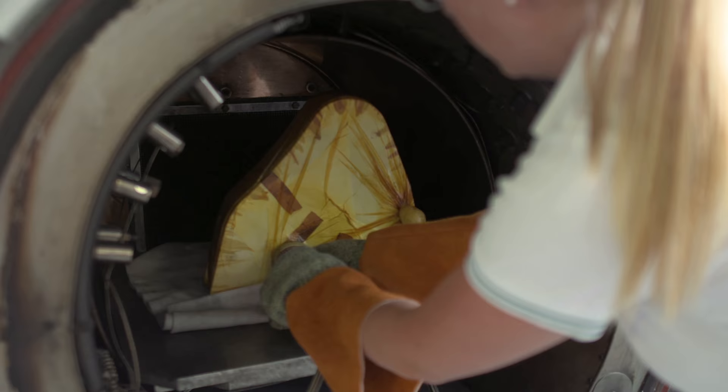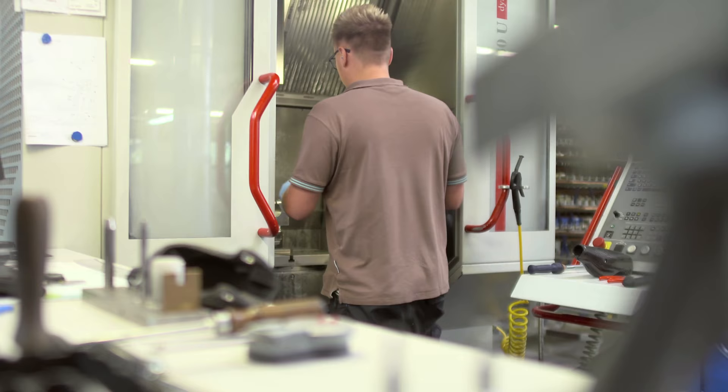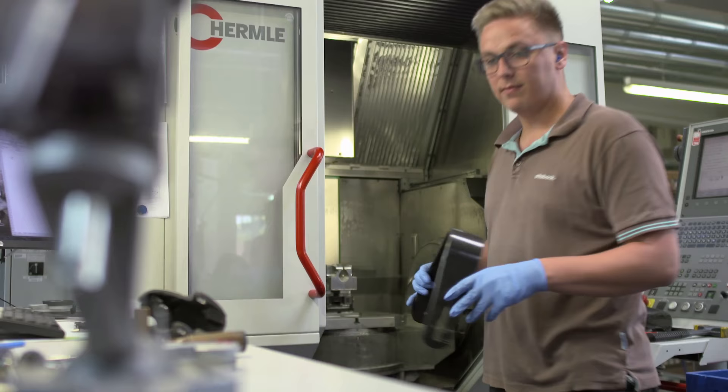After one and a half hours, we put the spring in a drilling machine where we mill the side edge and the holes for the adapter to achieve the final shape. The next step is to test the stiffness of the spring.